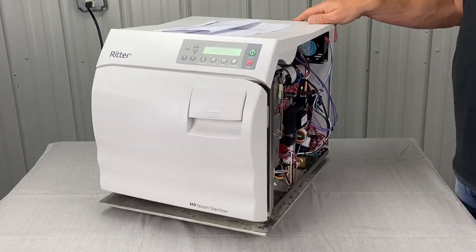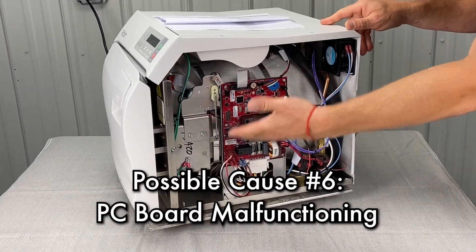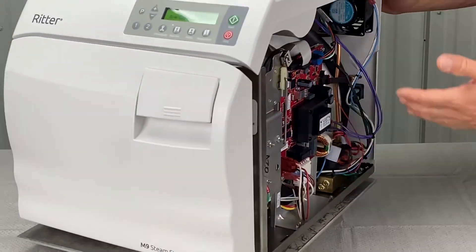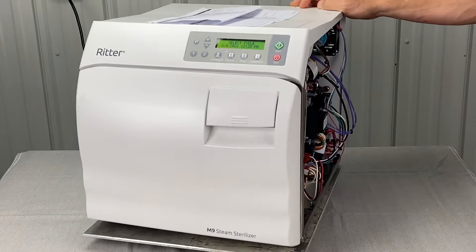This is leading me to the PC board. It could be that the heater relay is failing on the PC board or the fuse holders are bad. We can fix that — we do PC board repair.